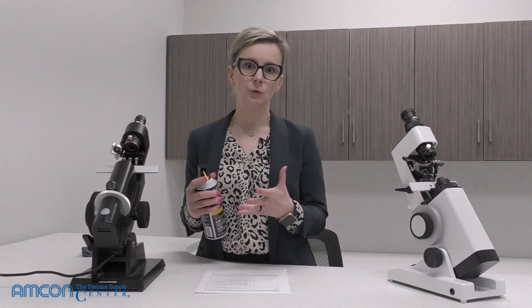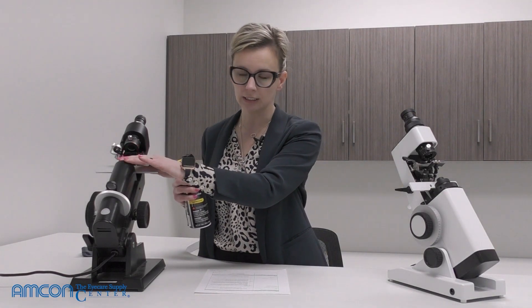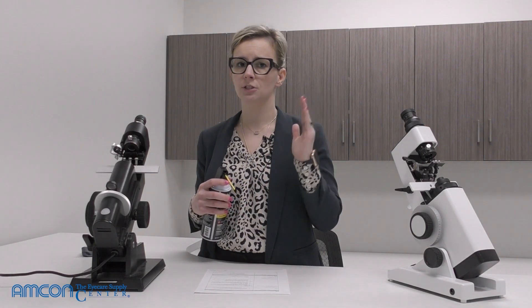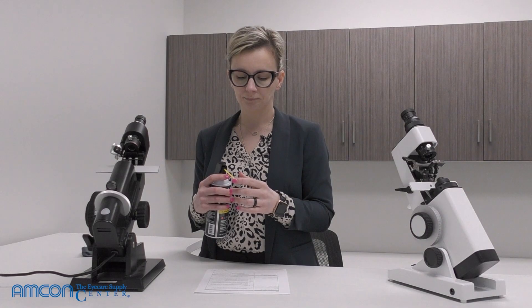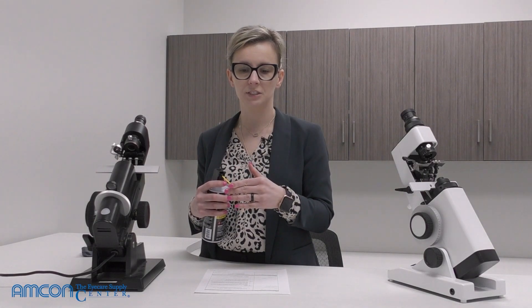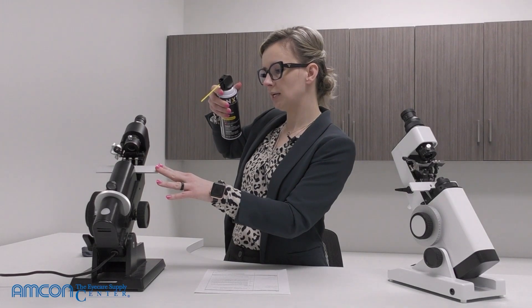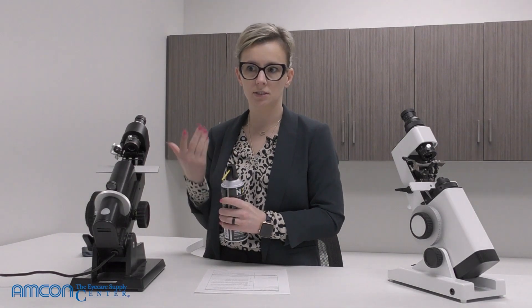As a rule of thumb, hold the nozzle about 10 to 12 inches away from the surface you're cleaning. This is cold air that shoots out, so if you've ever sprayed compressed air on a glass surface or mirror, you've seen it almost freezes a little bit and leaves a weird cloudy spot. We just don't want to risk ruining the lens on the lensometer, so spray from multiple angles to make sure any debris in a crevice is cleared out.